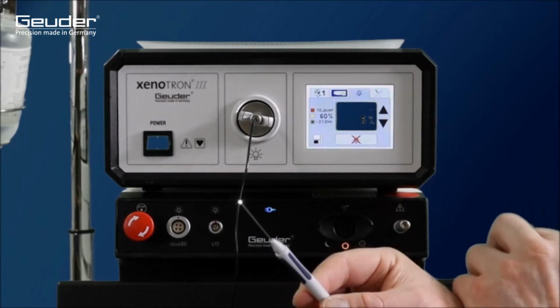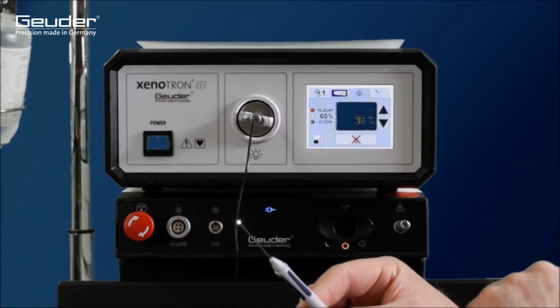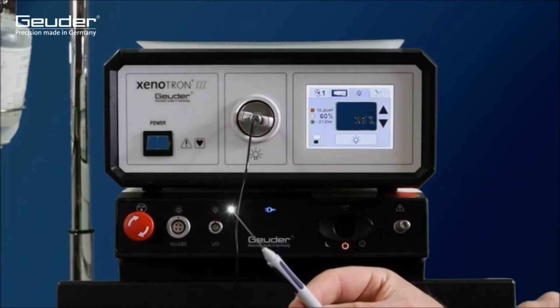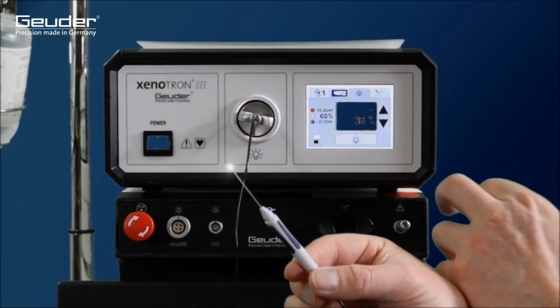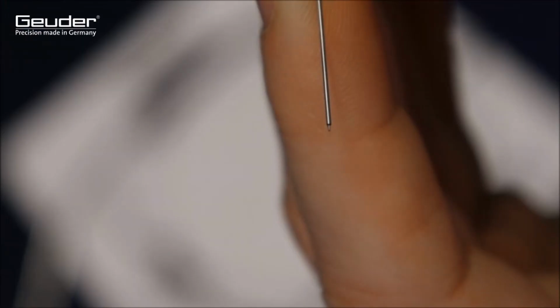The activation button is located at the bottom of the display. In the standby mode, an aperture is placed in front of it so that not the full amount of the selected light output is emitted. When activated, this aperture is removed and the preset intensity delivered.